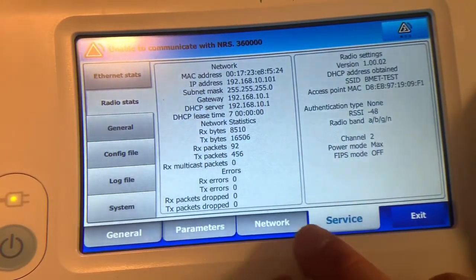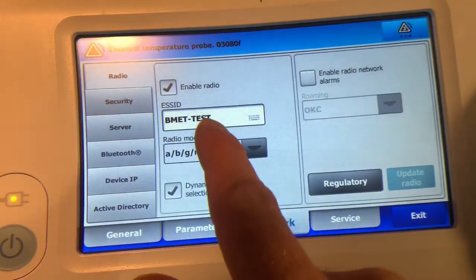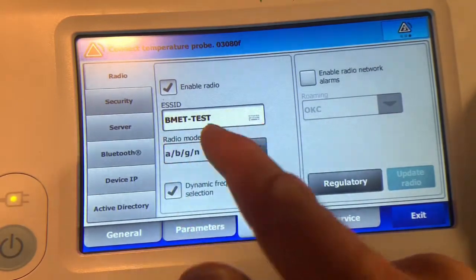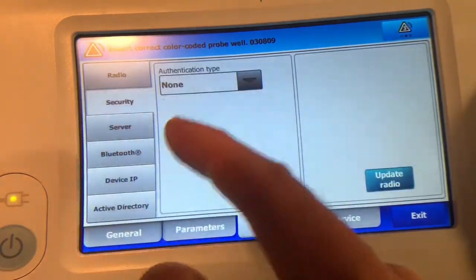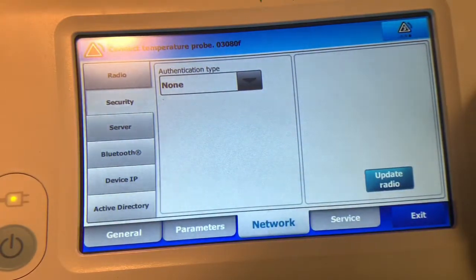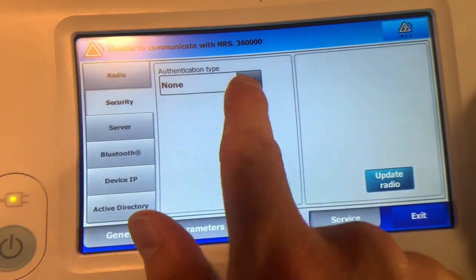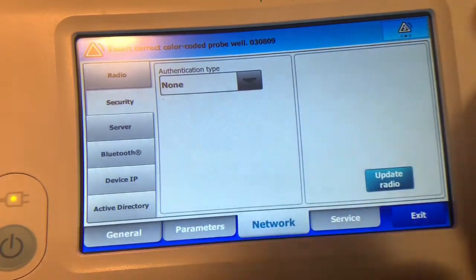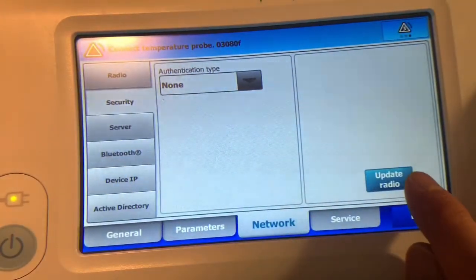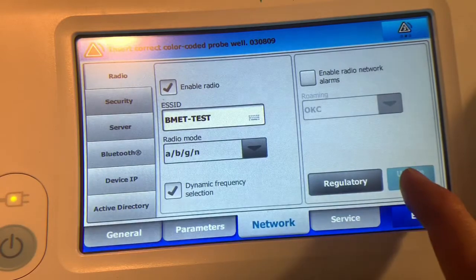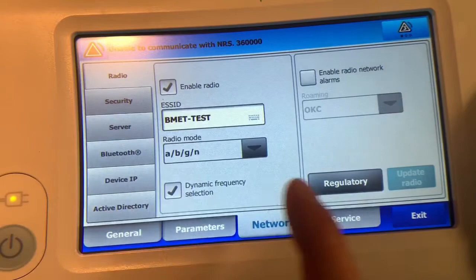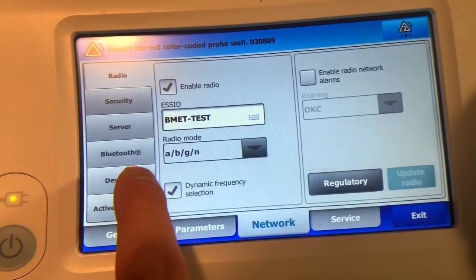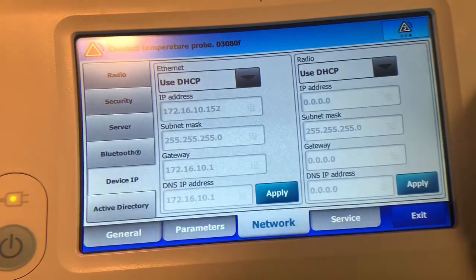So to recap, once you get into the system settings, I'm going to go to network, radio, change the ESSID to match whatever network name you're trying to connect to. Security is the next step you want to do. You want to go and choose your authentication type. In this example, there's no password on this or encryption, but generally you would want to select the matching type of encryption and enter in the password and stuff for that. Each time you change something you want to click update radio though, because if you change the next page, it will erase the settings on the previous page if you hadn't pressed update radio. Otherwise, to set a static IP address in the networking tab, go to device IP and then you can choose between either DHCP or you can set a static IP address.